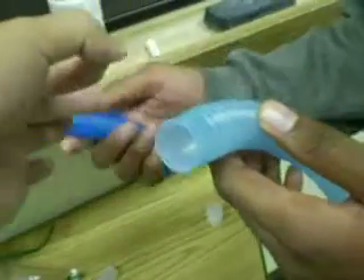So you would have the T-piece going right here, and then you would hook up another piece of reservoir tubing, which is this, and the third part of the T-piece would go into the piece. And don't forget about your temp probe — there would be a temp probe as well.